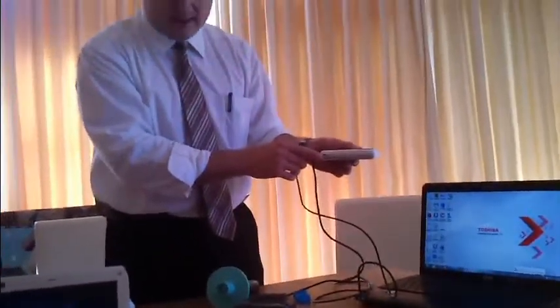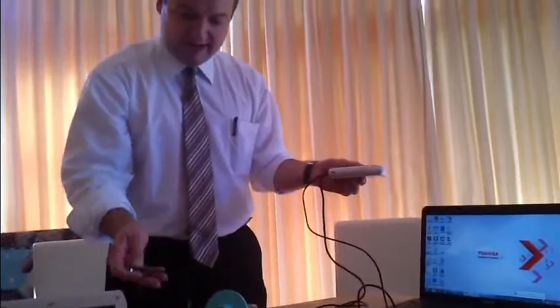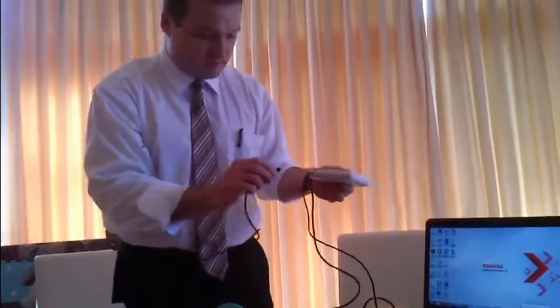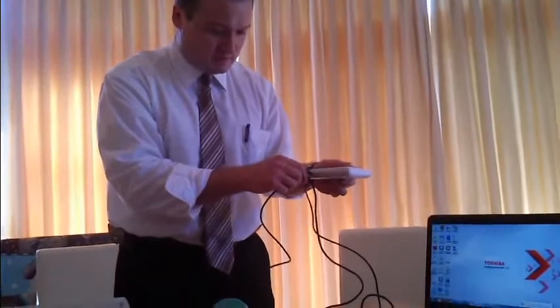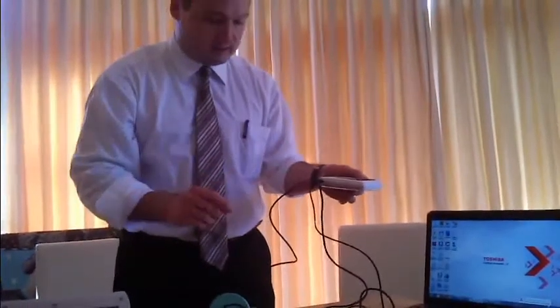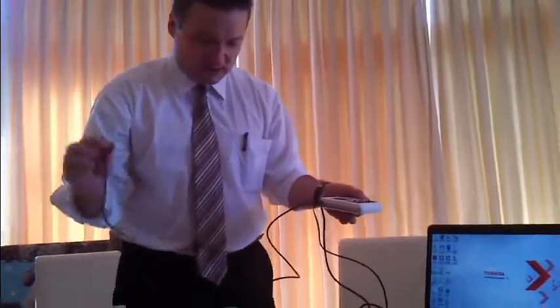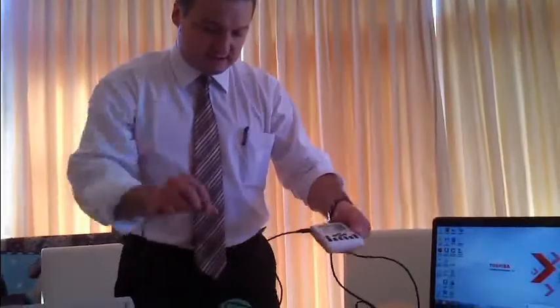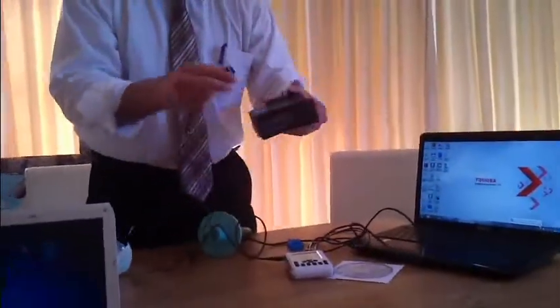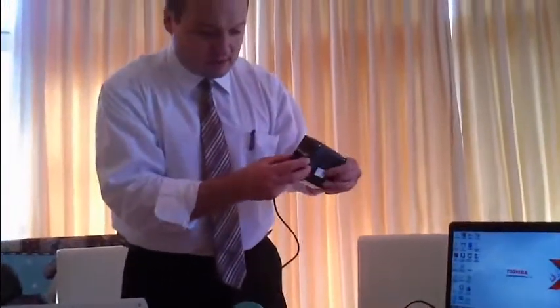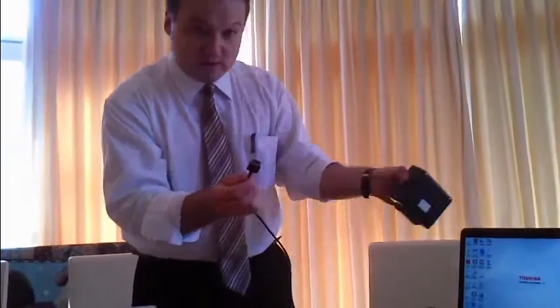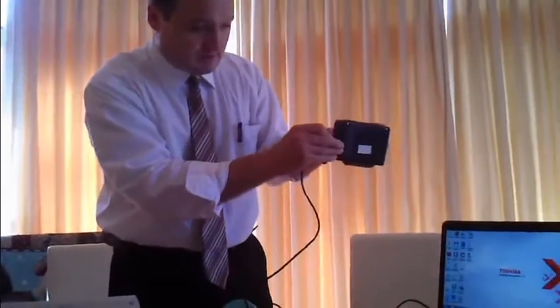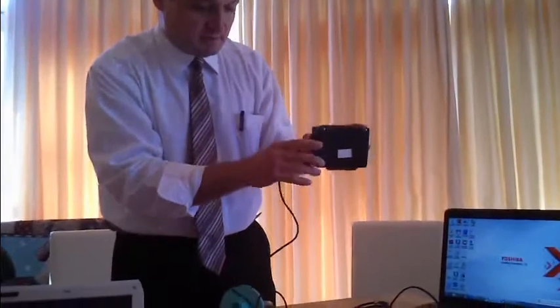On the side of the device there is a connector. It's a micro USB connector, which is different from a mini USB and they are not compatible. There is only one way to connect the printer cable. You connect that here, and the other side of the printer cable you connect to the printer here. That is also only one way of connecting this to the printer.